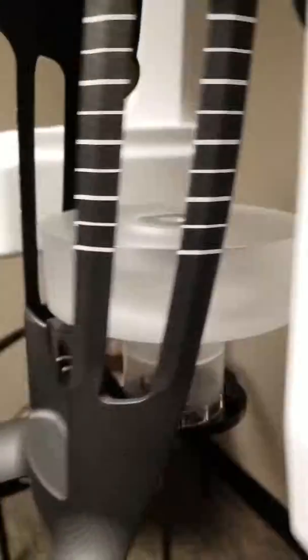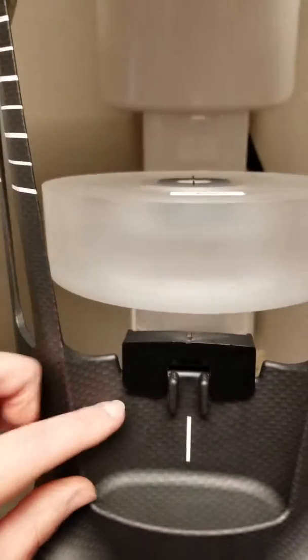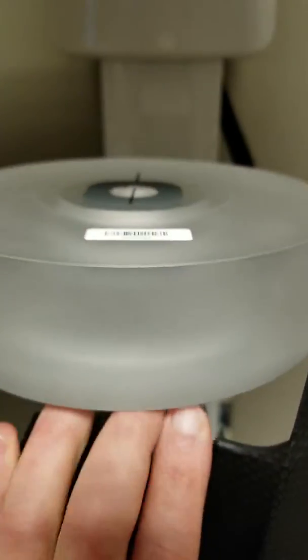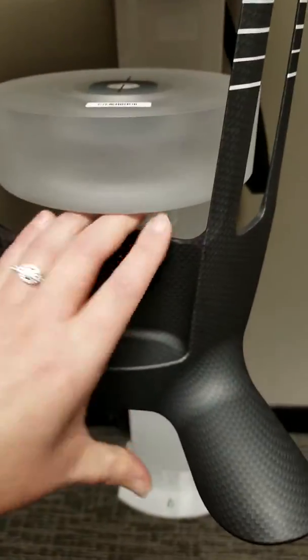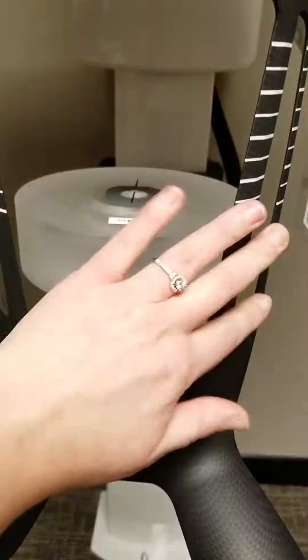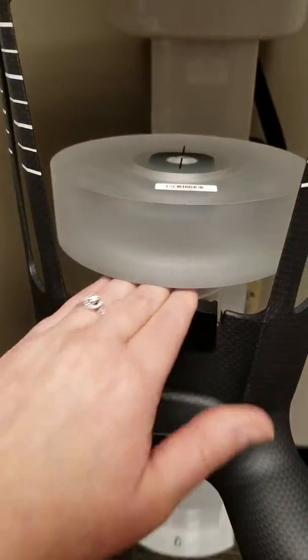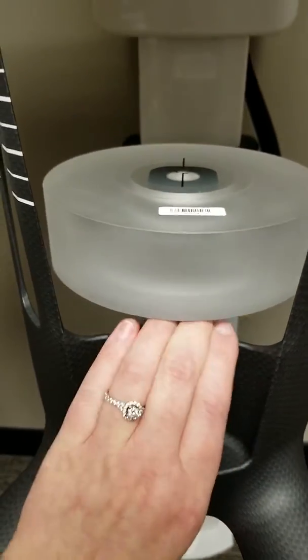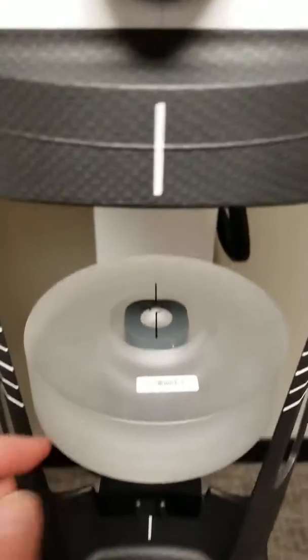It's kind of hard to see. So, okay, yeah, like that. Come around over here. Boom. And very carefully, you'll see how this is kind of up a little bit still. You want to make sure to push it down. I usually just grab here and grab here, because you don't want to just push here. It'll weaken the structure over time. So just grab here, grab underneath here, and squeeze it together. Make sure everything's seated real well. Good. And then, of course, make sure all this is lined up with that.